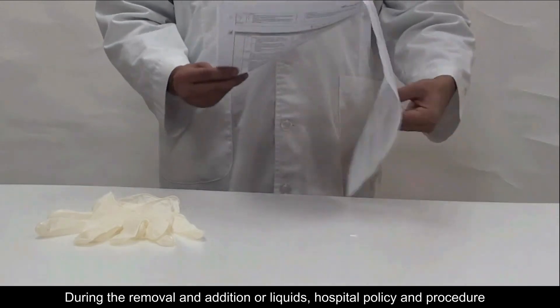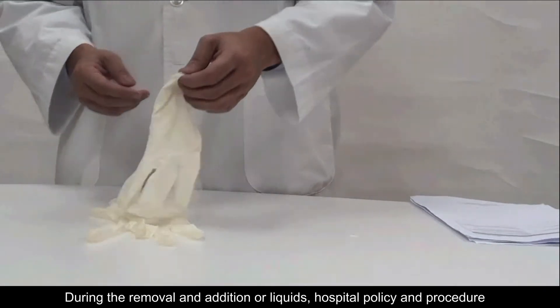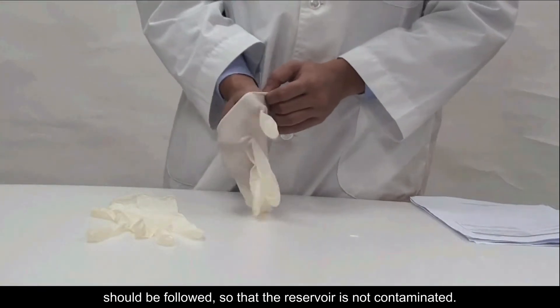During the removal or addition of liquids, hospital policy and procedure should be followed so that the reservoir is not contaminated.